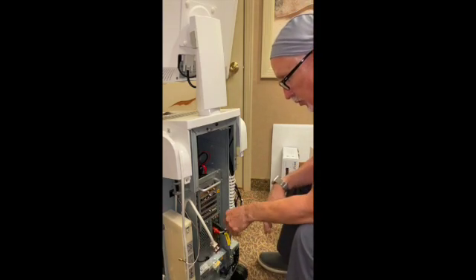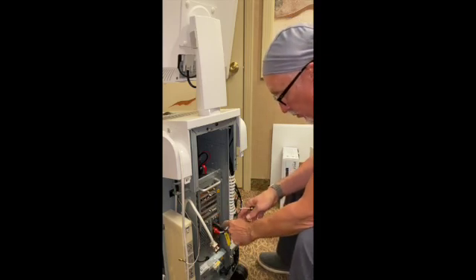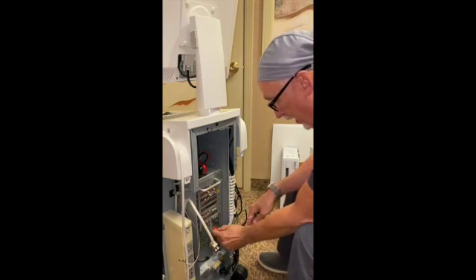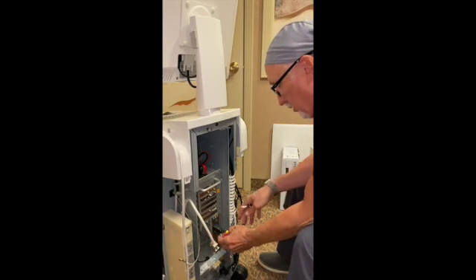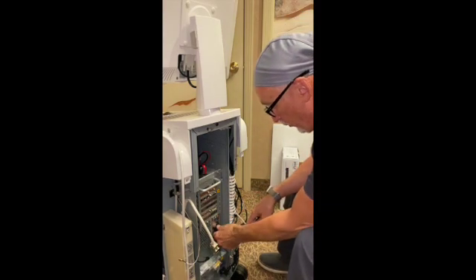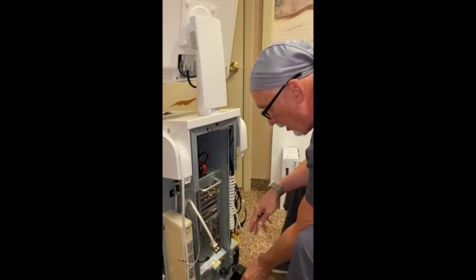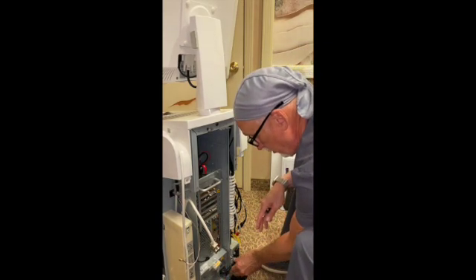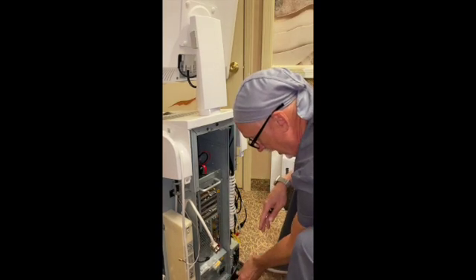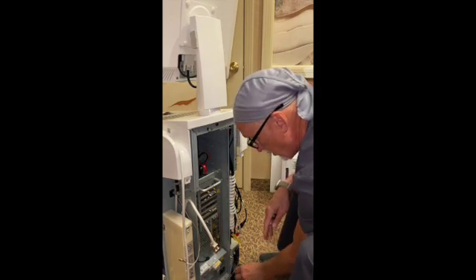I like to put them back in the same order they came out. You don't have to, but if you do, I just put little numbers here with a Sharpie and a piece of tape. This is a lot of USB connectors — only this one here is a network connector, the rest are USB connectors. Sometimes you'll have a fourth one for a radio on the newer CEREC units. Unplug the power unit — you can just flip this guy this direction. Unplug the power unit. Unplug the backup battery down here. Just fold those underneath.